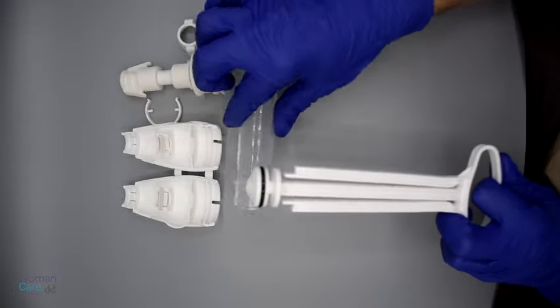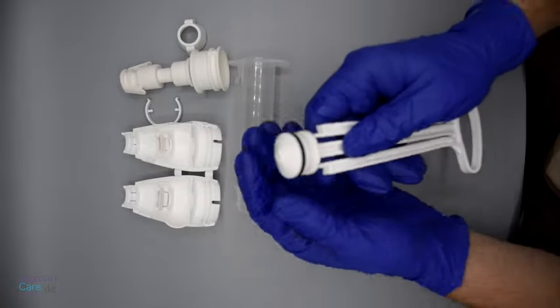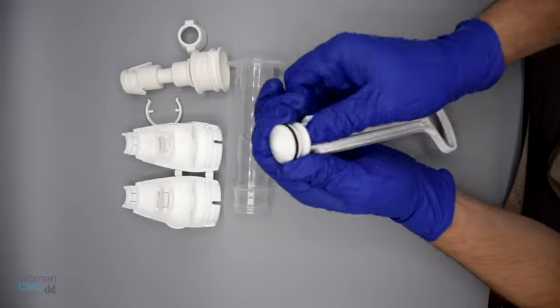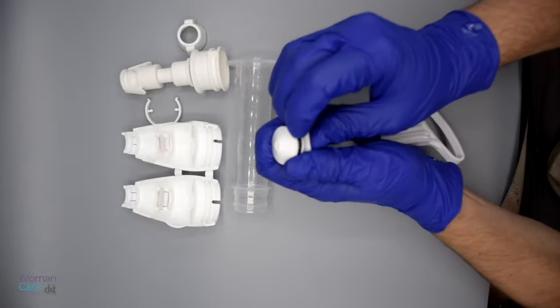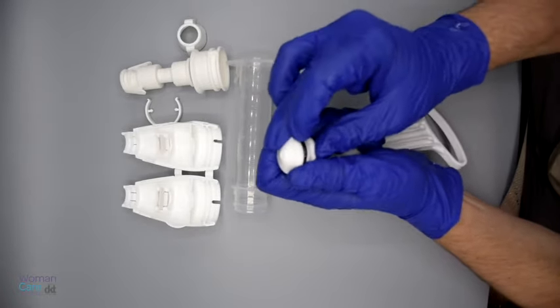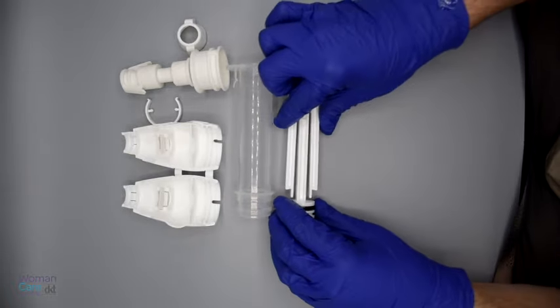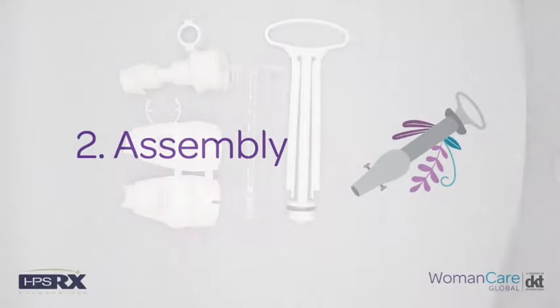After the collar stop is removed you can pull the plunger completely out of the cylinder. The last step is to remove the o-ring, which is a little tricky. You do this by pushing on each side of the o-ring and pushing up a little bit and then using your other finger to pull that o-ring down into the section below.